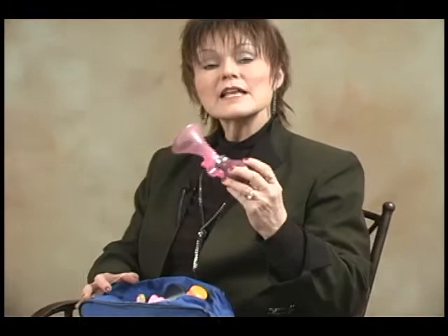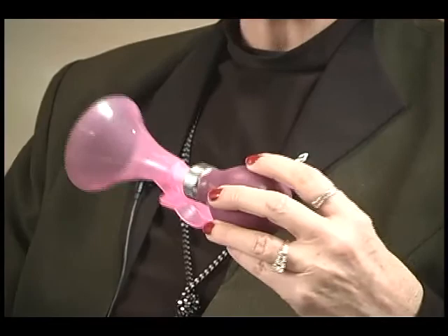The startler instrument is just a very simple bike horn that you can pick up anywhere. The reason we have it in the hearing screening kit is because for small children and infants, they need to be startled for you to observe what type of reaction they have. This is around 69 to 72 decibels — very loud. But it serves as a startler sound so that you can observe the small child that's not used to locating on a sound that's presented.